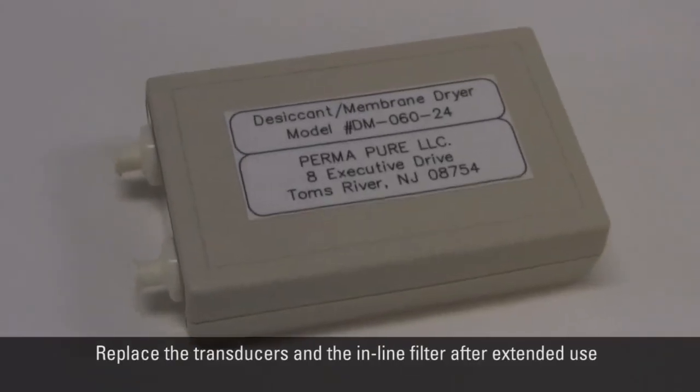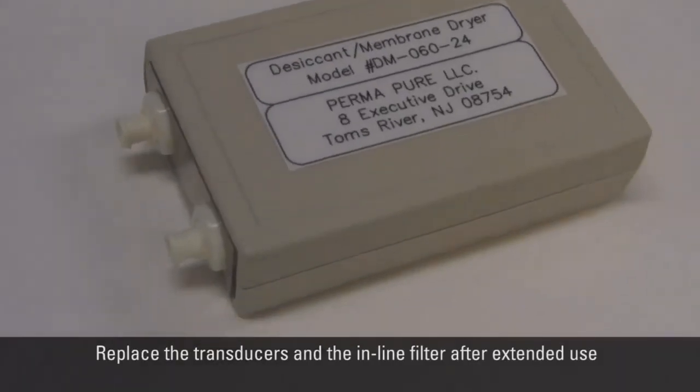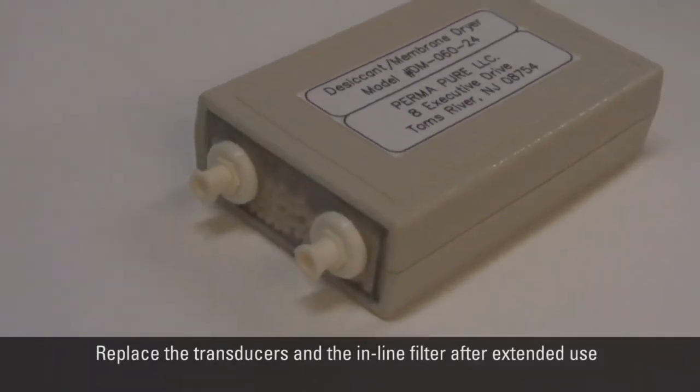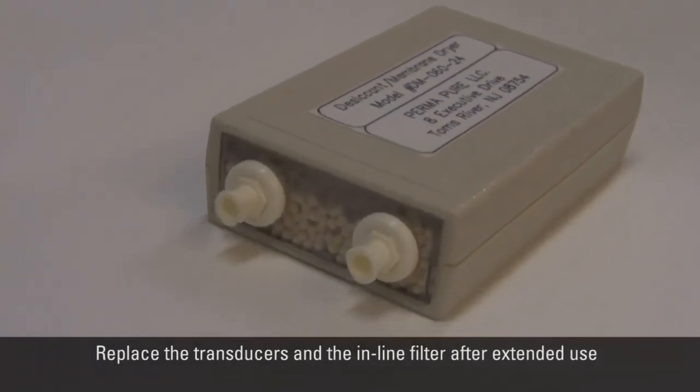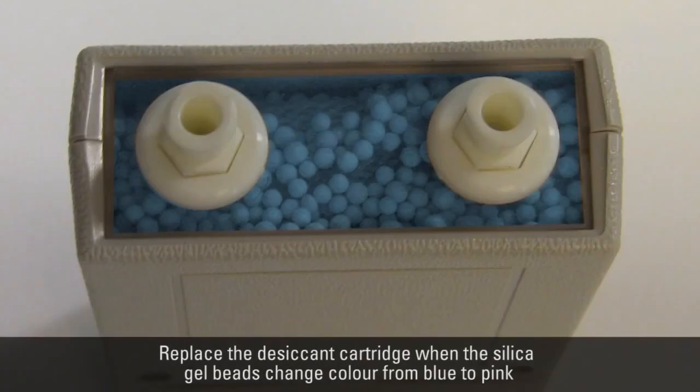Please note that the transducers, desiccant cartridge material and the inline filter may need replacing after extended use. The desiccant cartridge needs to be replaced when the silica gel beads change color from blue to pink.